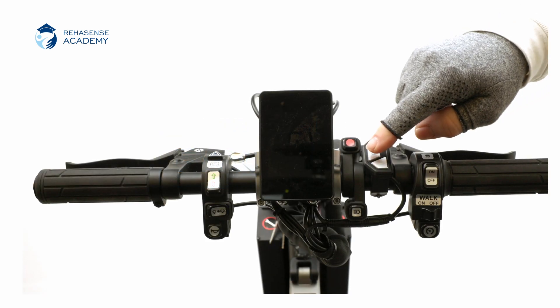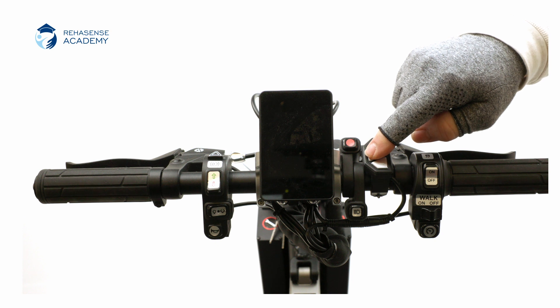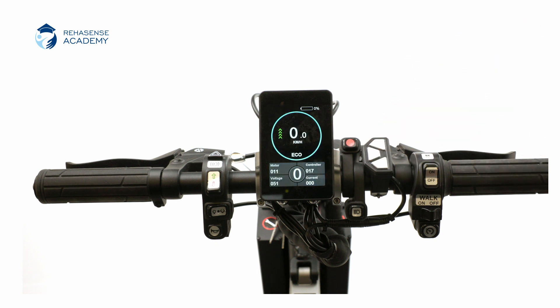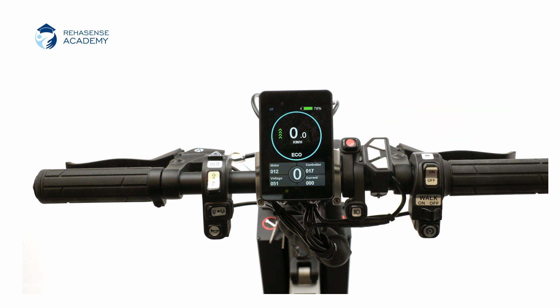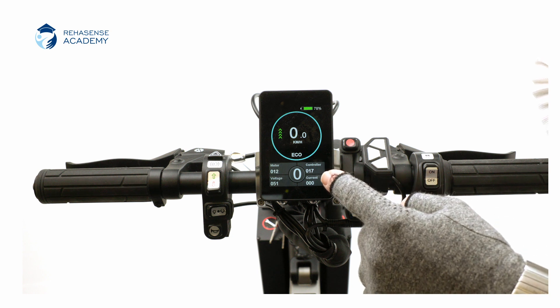To start up, you need to keep the power button pressed until the display lights up. You will now see information on the bottom of the display.